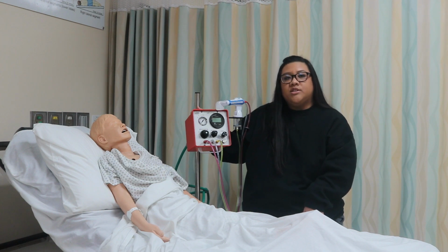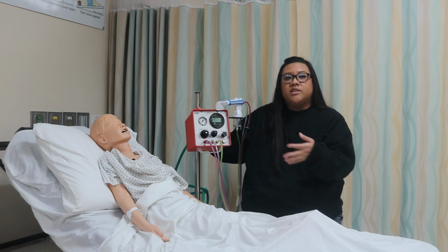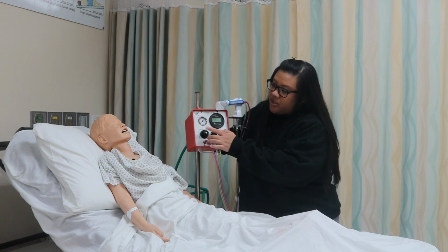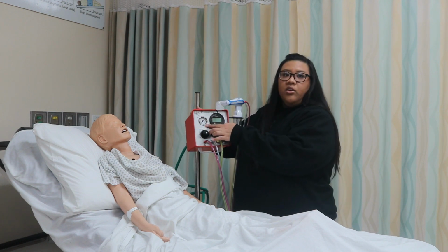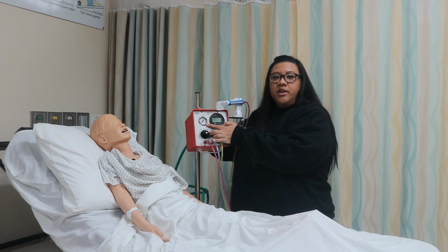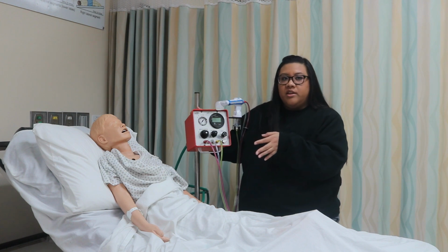So the gas enters at 50 psi and it's directed through a pressure regulator. The on and off switch here, so when it's on, it will open up. If it's off, it will prevent the flow of gas from the compressed gas source into the pressure regulator. The operational pressure here makes adjustments to the device's working pressure. The front panel contains an aneroid gauge. This displays operational pressure, and you want a driving pressure of 30 to 40 psi during IPV to achieve therapeutic effects.